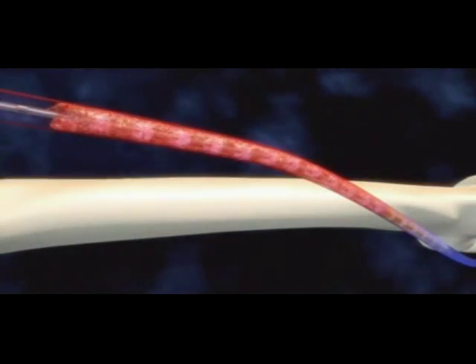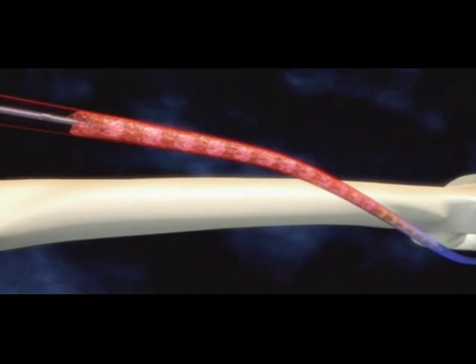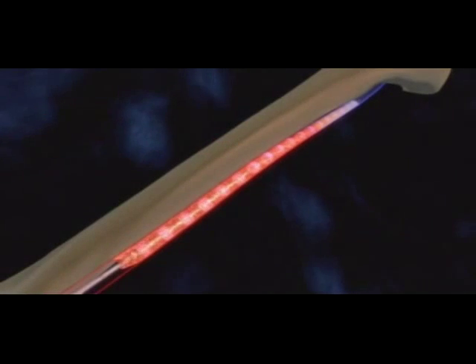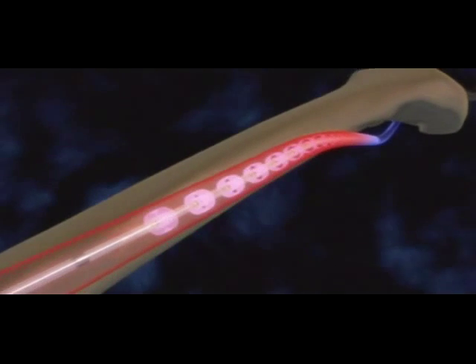The lysis system simultaneously delivers drug and ultrasound energy along the entire length of the clot. The clot quickly clears, allowing the clinician to diagnose and treat any underlying lesion.